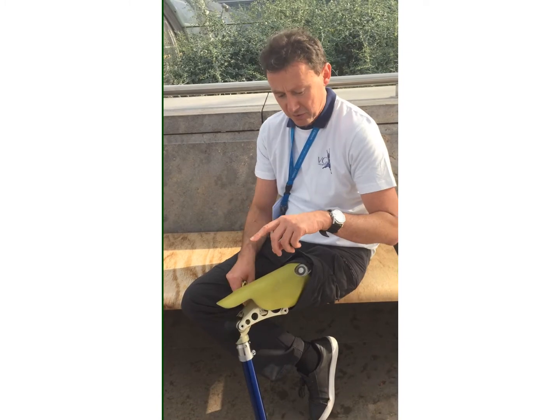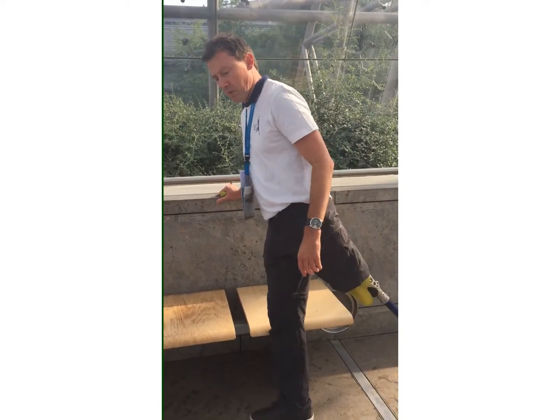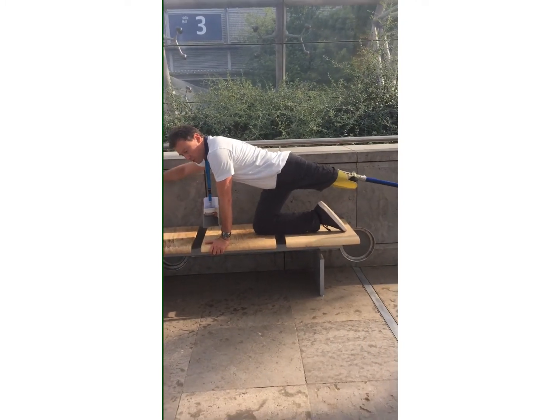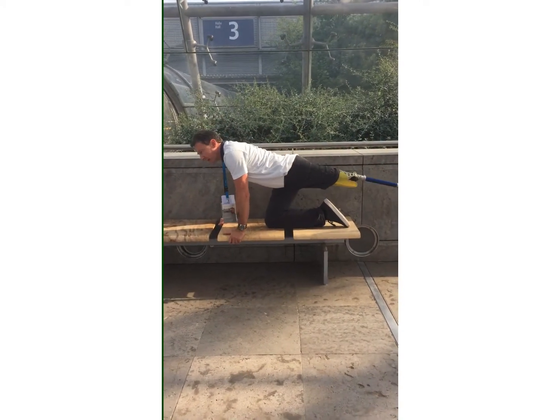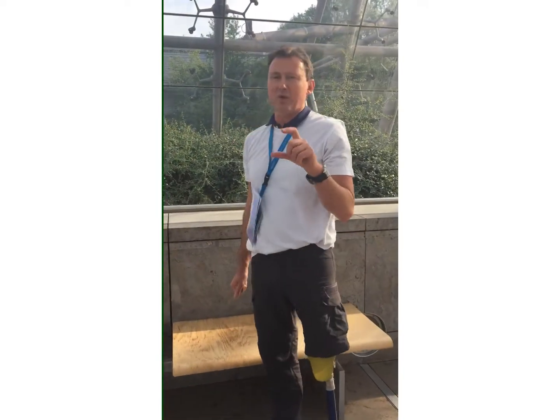Why I want to tell you that? Because when you're in motion for short distances, you can really move it very easily. And there are exercises like Pilates — when you're doing Pilates, you don't want to have all your weight very far away from your body. So it allows you to move whatever little bone is left, the most of it.